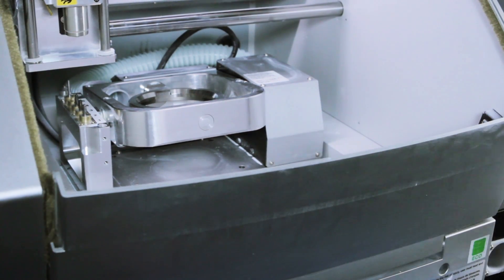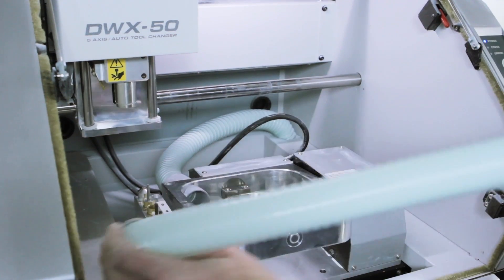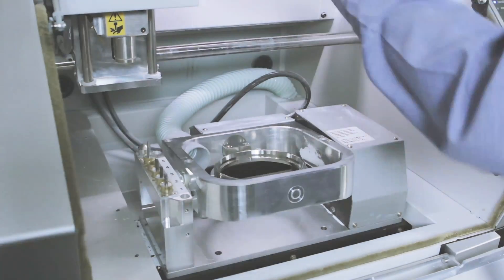Please note that you must have the cover closed when performing these functions. Although it is important to clean your mill as thoroughly as possible after each milling job, particular attention should be paid when cleaning prior to calibration.